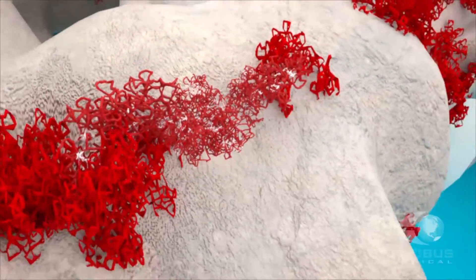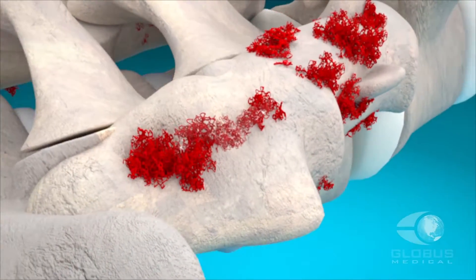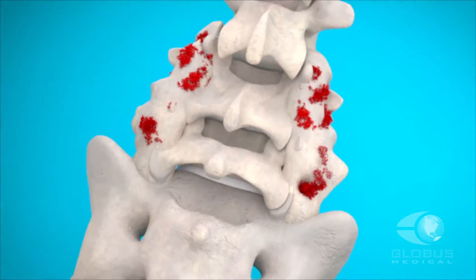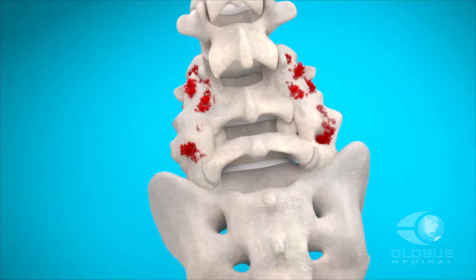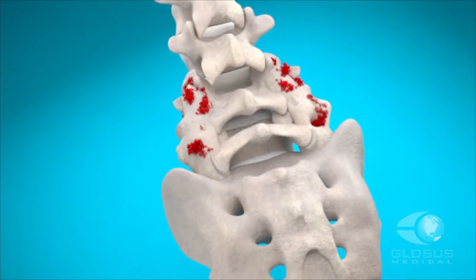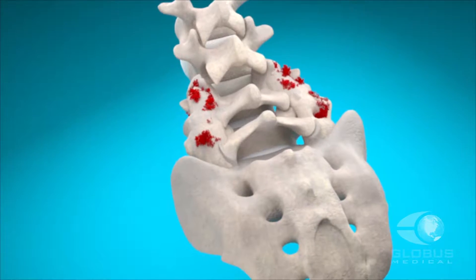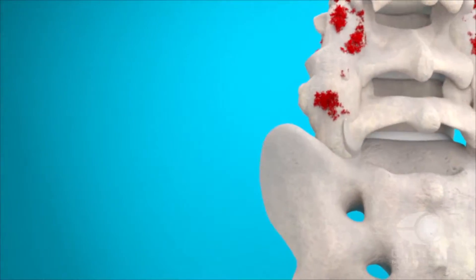Kinex Plus has one of the highest percentages of bioglass of any product on the market. Kinex Plus enhances Globus' regenerative biologics portfolio and further extends the breadth of our biologic solutions for the treatment of musculoskeletal disorders.